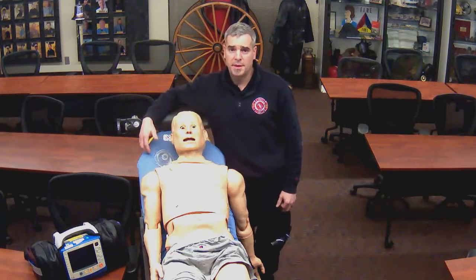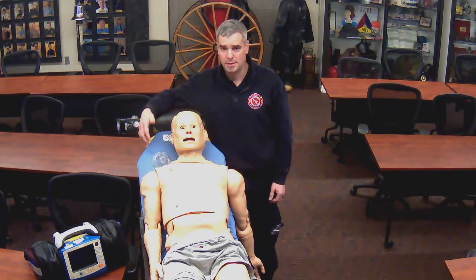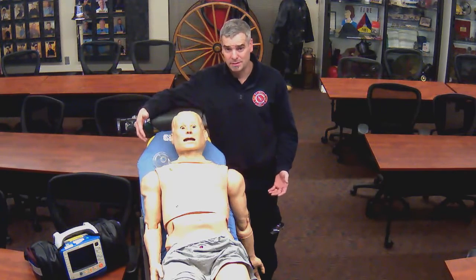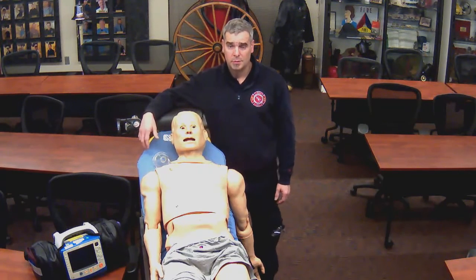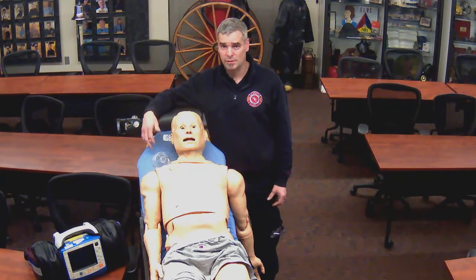Sometimes when monitoring a sick patient's EKG, we may notice ST elevation and reciprocal depression, thus identifying that the patient is having a STEMI or heart attack. We can serve the receiving hospitals best by sending them these details, and we can do that through a 12-lead transmission. We'll cover those details now.